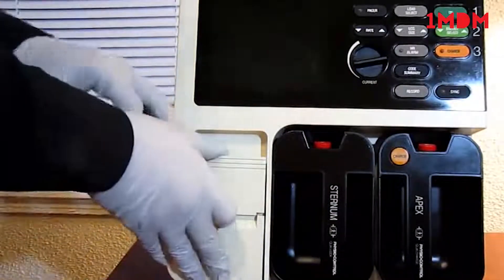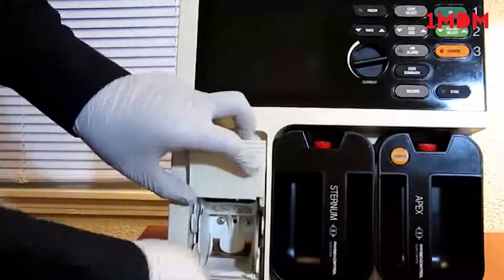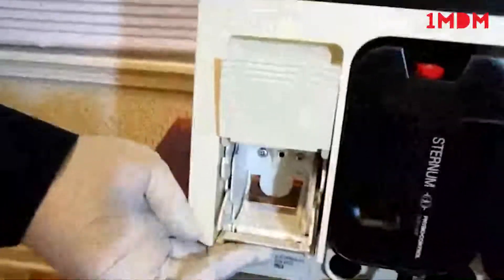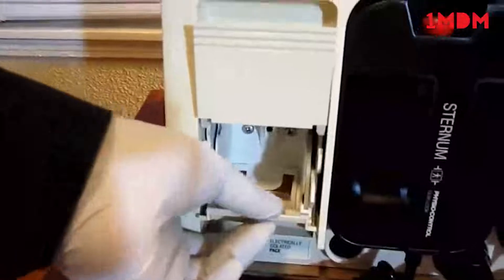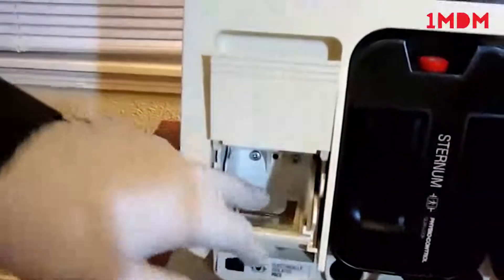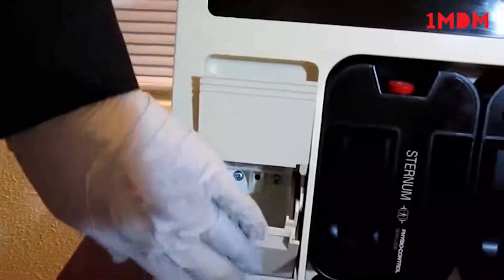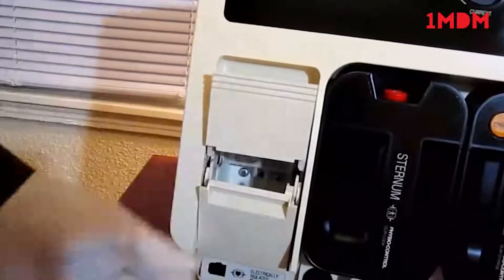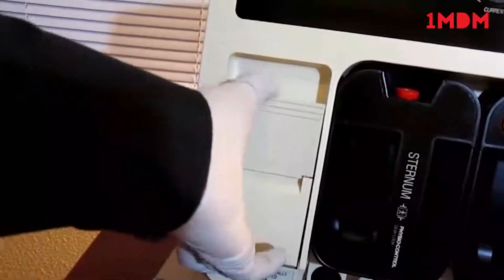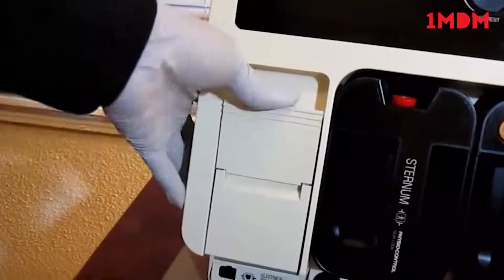The only problem with this unit is the printer module. As you can see, it does not have a roller. I don't know if just a roller would solve it. It might need a brand new printer assembly.